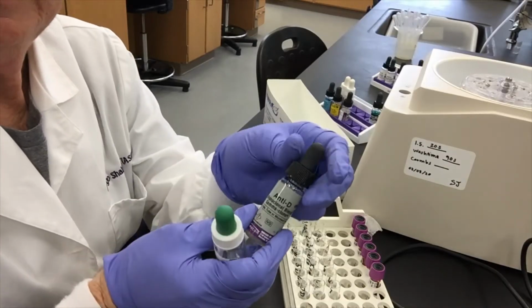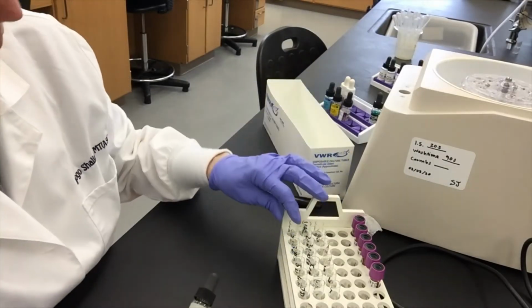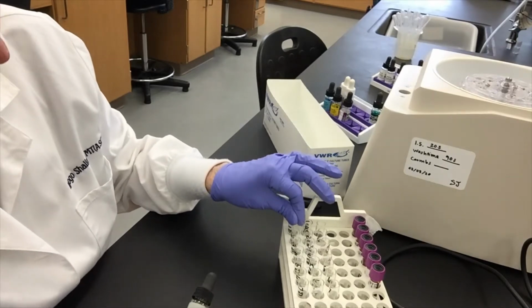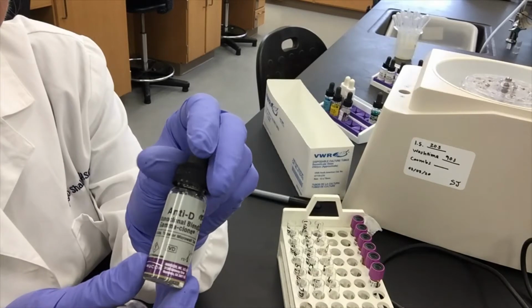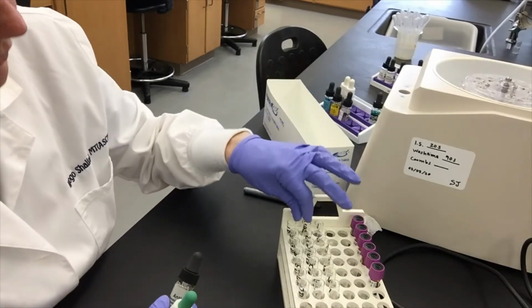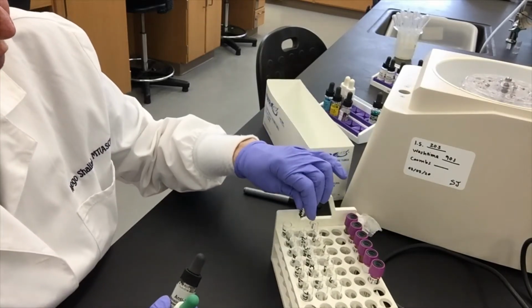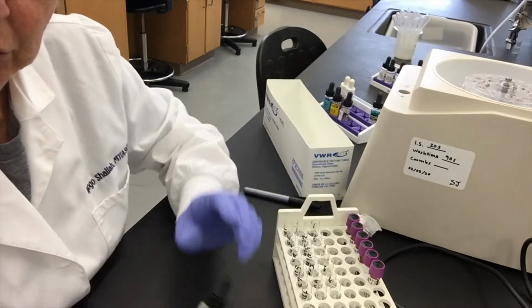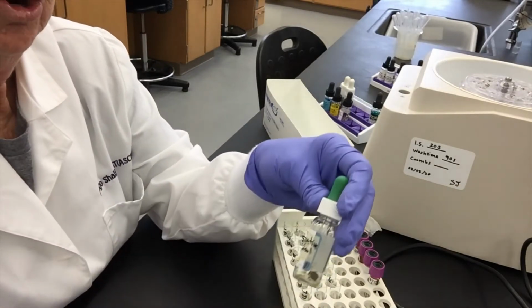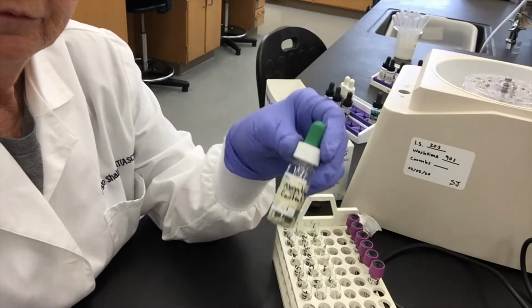Okay, our next segment. So I've labeled my tubes. I have a 1, the number of my sample, and this one is D for the anti-D reagent that I'm going to add. And then the 2 behind it is the control, and it has a 1, the number of my sample, and it says control. And I'm using an RH negative control for that.